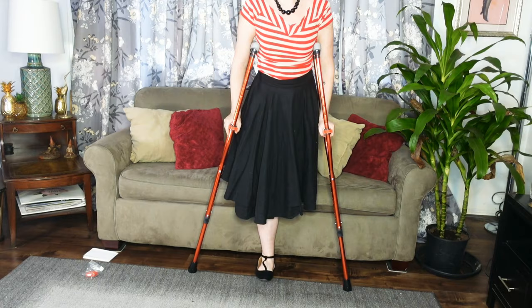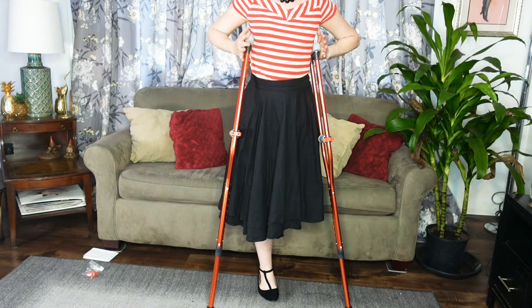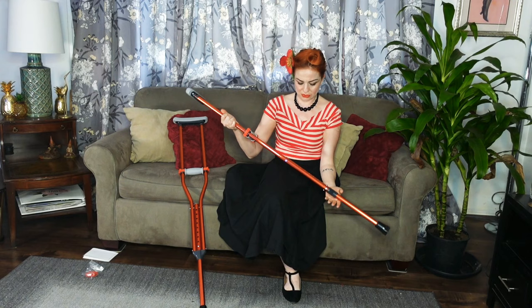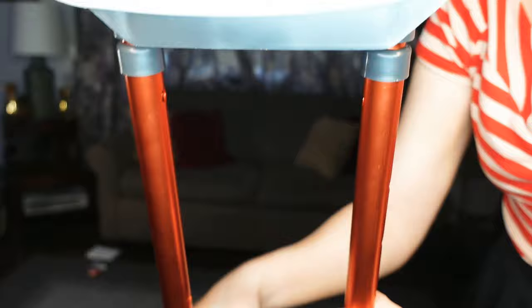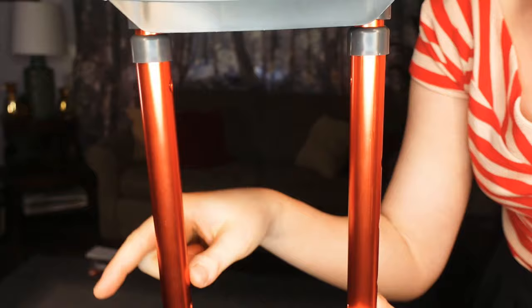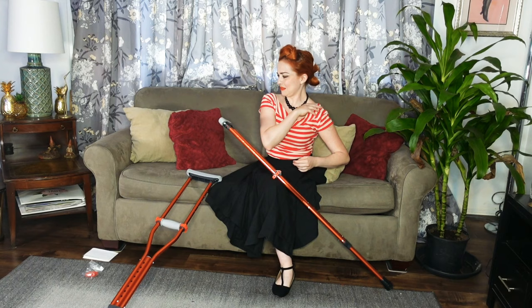Initially you're probably thinking yeah that works, but really it doesn't — it's just not the best position, not quite the right spot where I want it. The handles are good but I'm not sure. Let's see... it looks like we can adjust right up there. Excuse my hands, I don't have my nails done, but it looks like we can adjust up there. Maybe I should have looked at instructions.